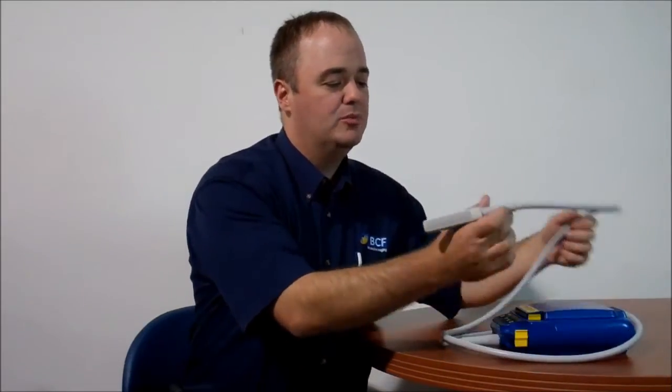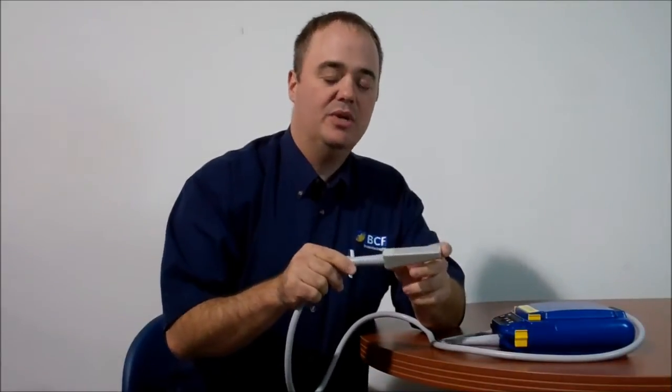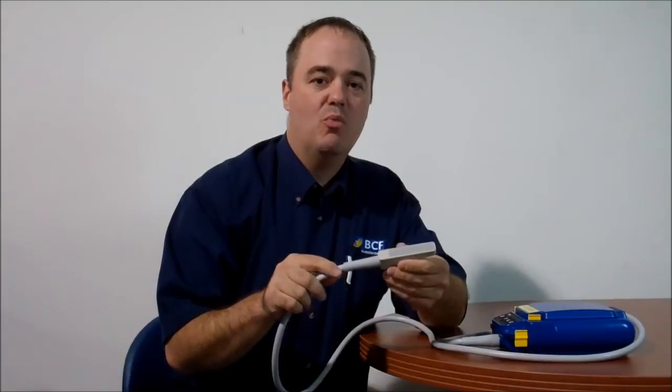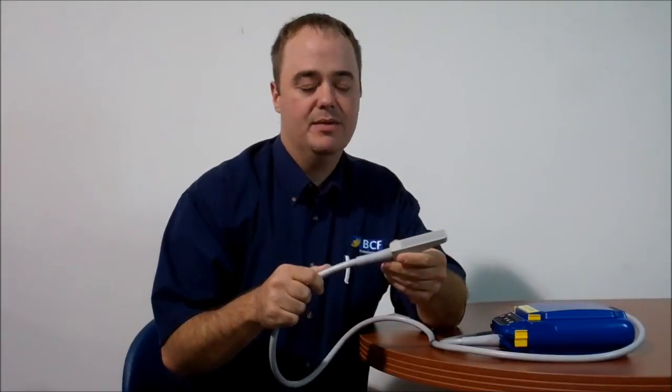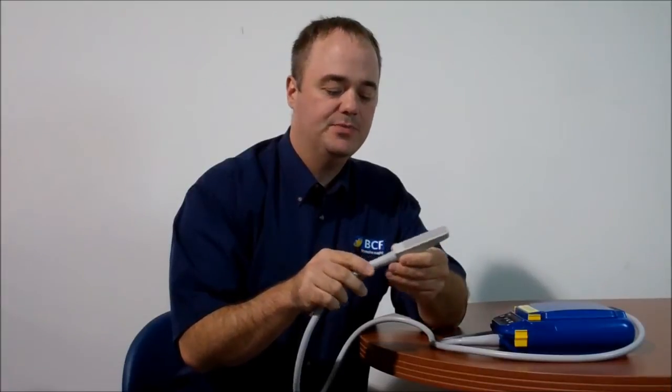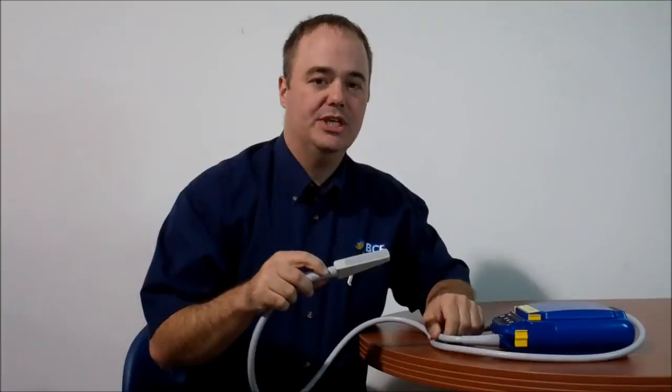Some of the key differences to probes on the market is they'll have between 80 and 128 crystals in their probe head itself. Generally the more crystals, the higher quality image. Our probe has 128 crystals in the probe base and each crystal has an individually wrapped wire going all the way back to the machine.